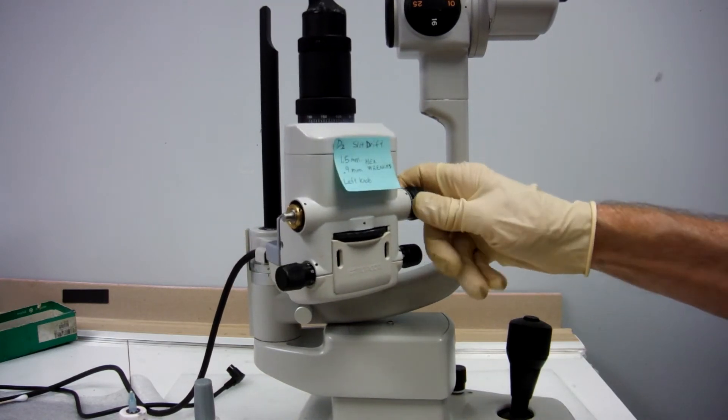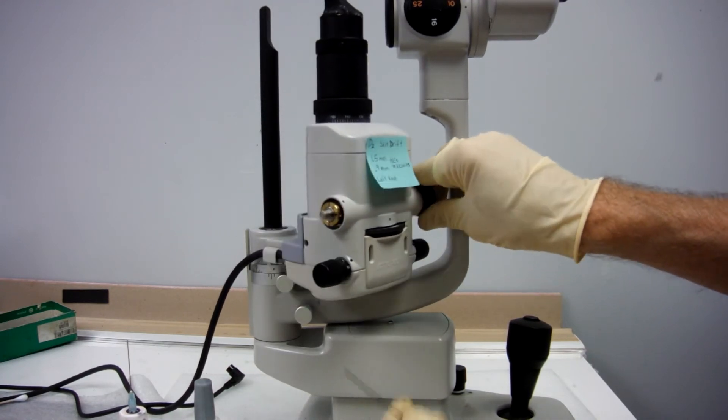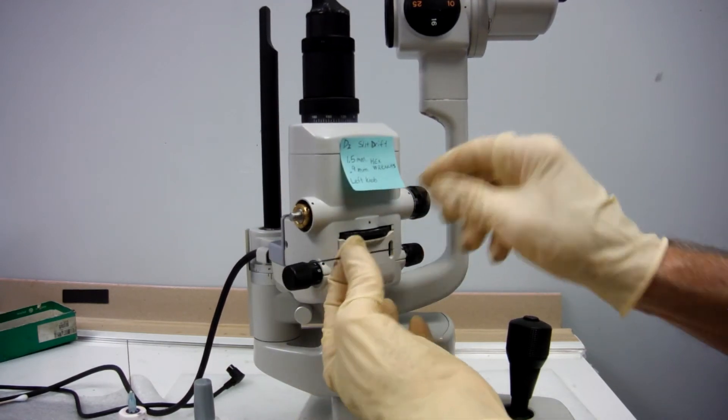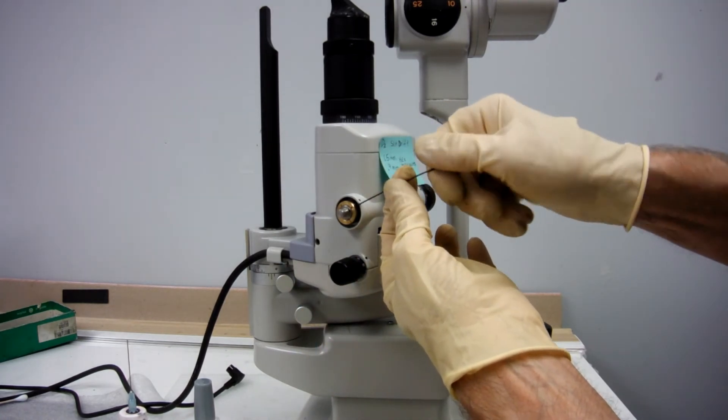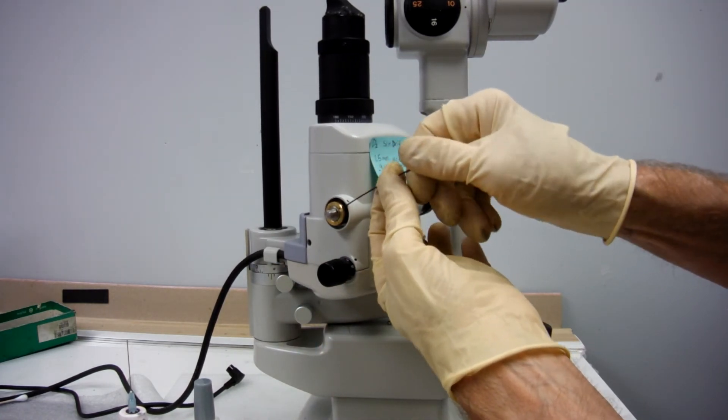If it's not, if it's good enough, then go ahead and tighten your little Allen screw, your lock screw, with your .9mm.